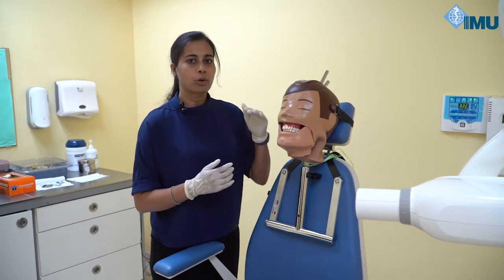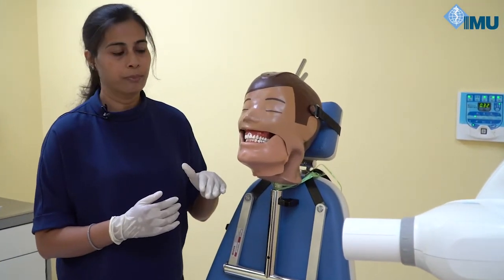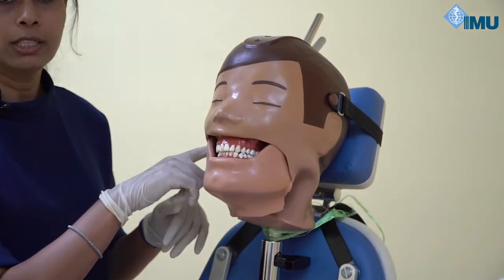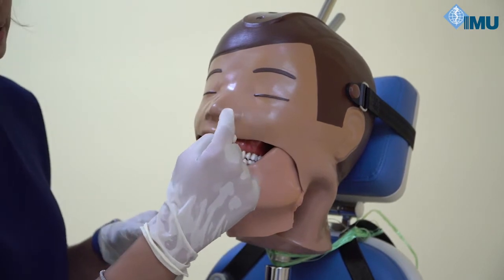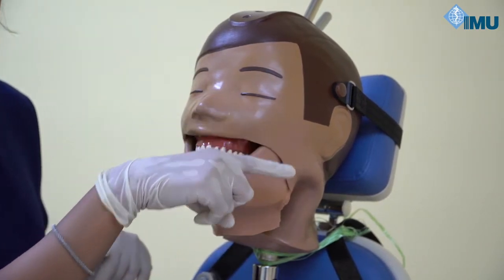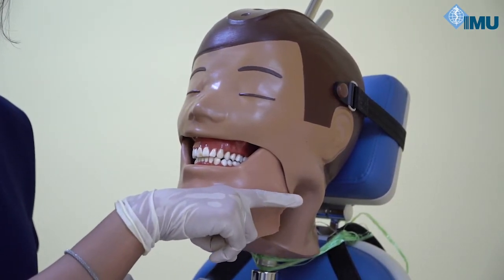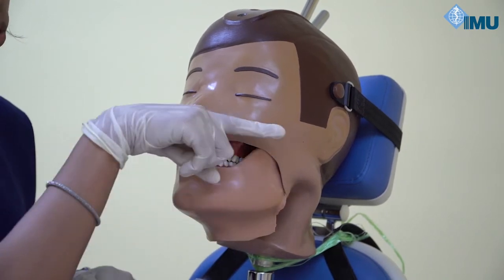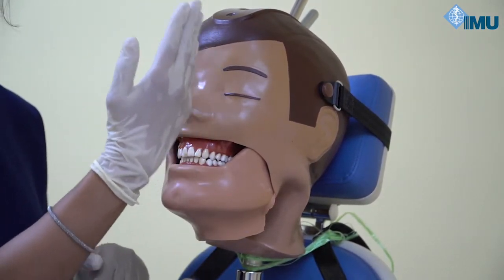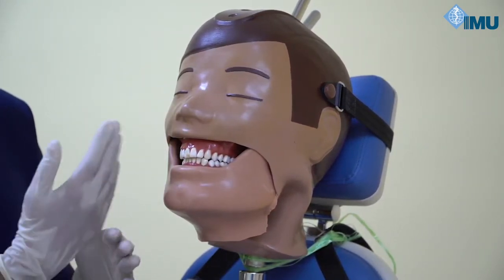Before discussing point of entry and angulation, there are two lines of concentration — one for maxilla and one for mandible. For the maxilla, the line of concentration is the ala-tragus line, drawn horizontally from the ala of the nose to the tragus of the ear. For the mandible, it is one centimeter above the base of the mandible. These horizontal lines are static for both jaws, while the vertical lines differ for each tooth.